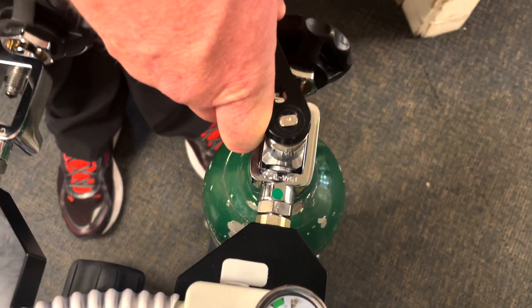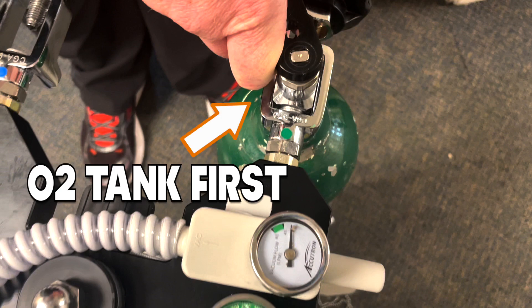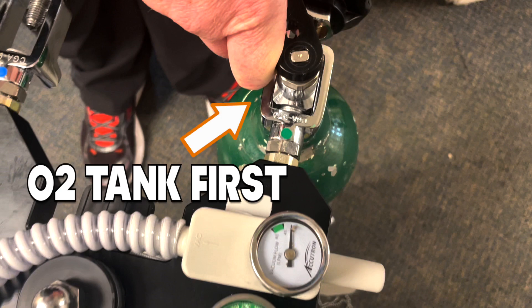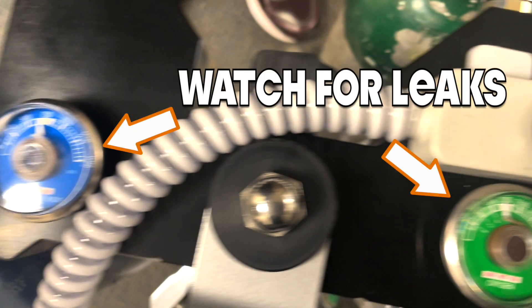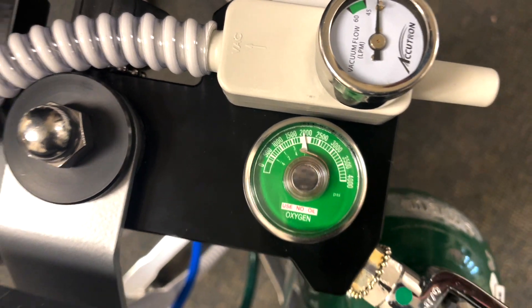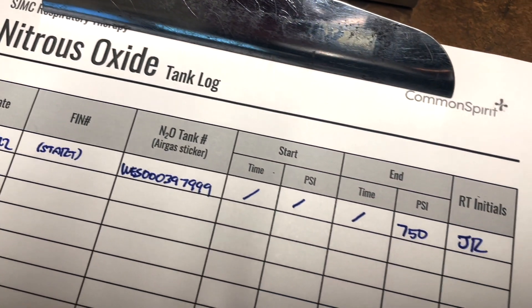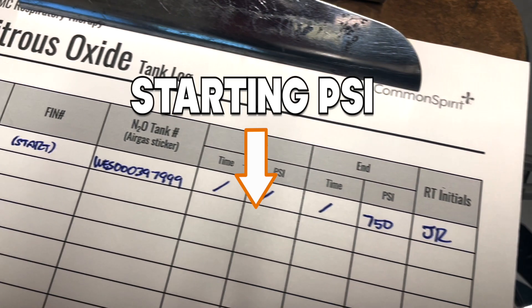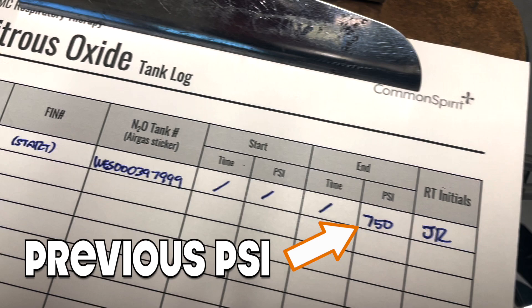Now it's time to turn on the tanks. Open the tank starting with oxygen, followed by nitrous. Watch the gauges and listen for about 10 seconds to ensure there's no pressure leak — if there is, check the seating of the tanks on the regulator. Next, begin filling out the nitrous tank log, being sure to compare your starting PSI with the ending PSI from the previous procedure.